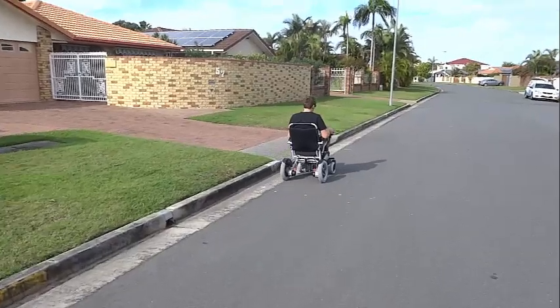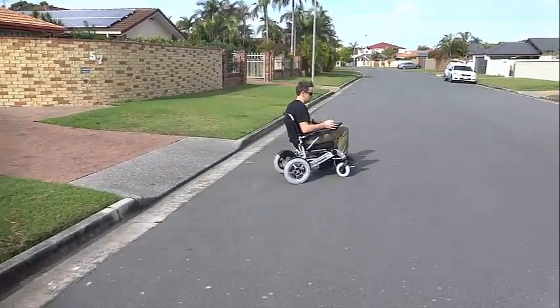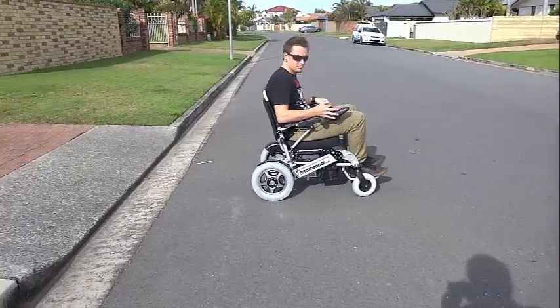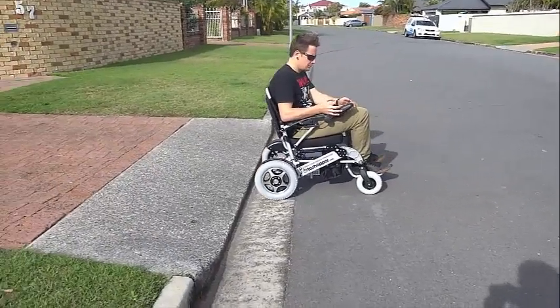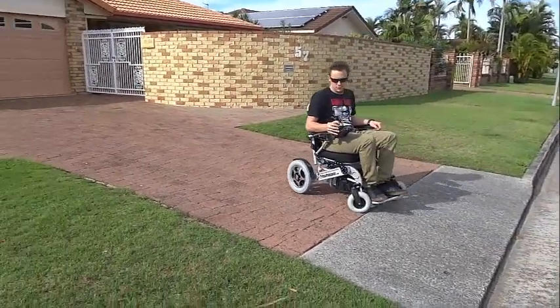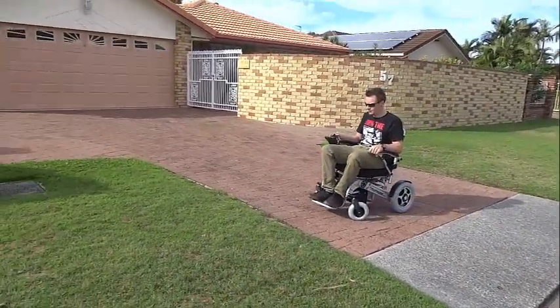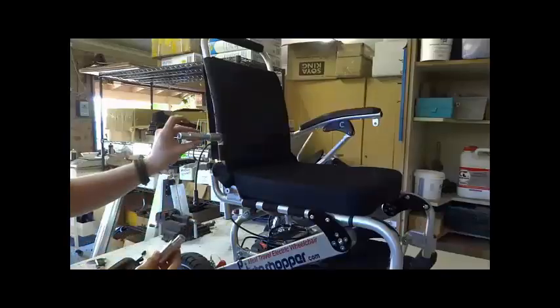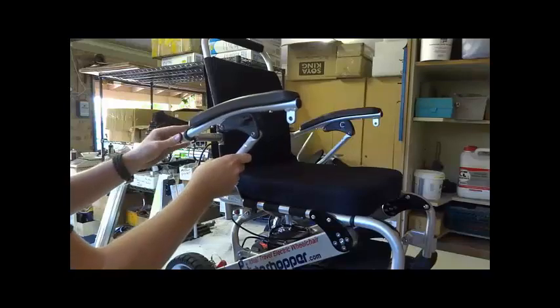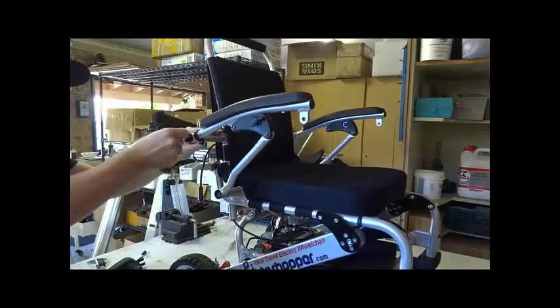It also comes with the adjustable backrest, which is great for really tall passengers. This unit can carry passengers weighing up to 145kg or 319lbs and has a distance between armrests of 49cm or 19 inches, allowing you to widen it to 59cm or 23 inches using the free included widening kit.